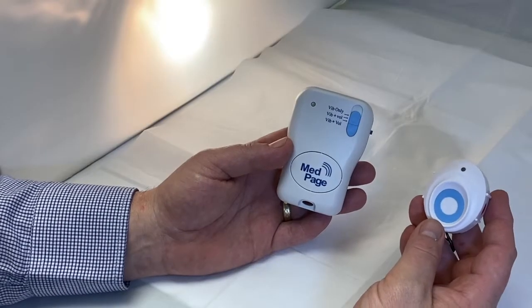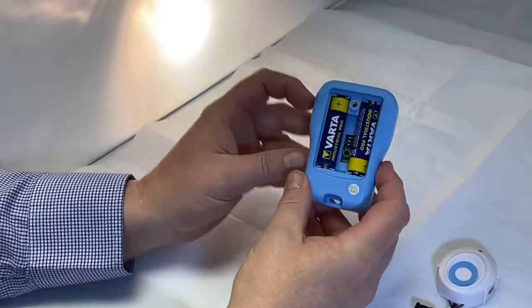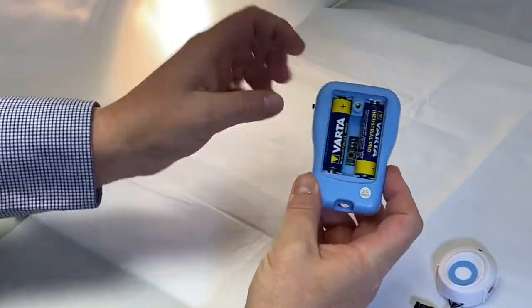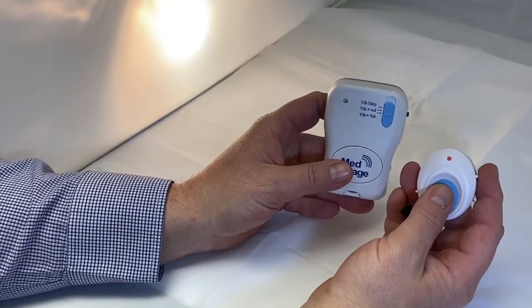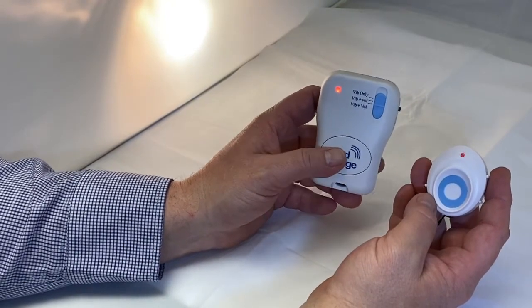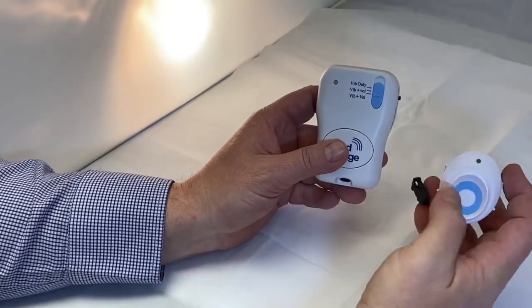To pair the FA6, switch on your pager and press the pair button. Red LED will come on. Put your finger over the touch sensor button and pair. As you see, it's activated. Reset the pager and just confirm.